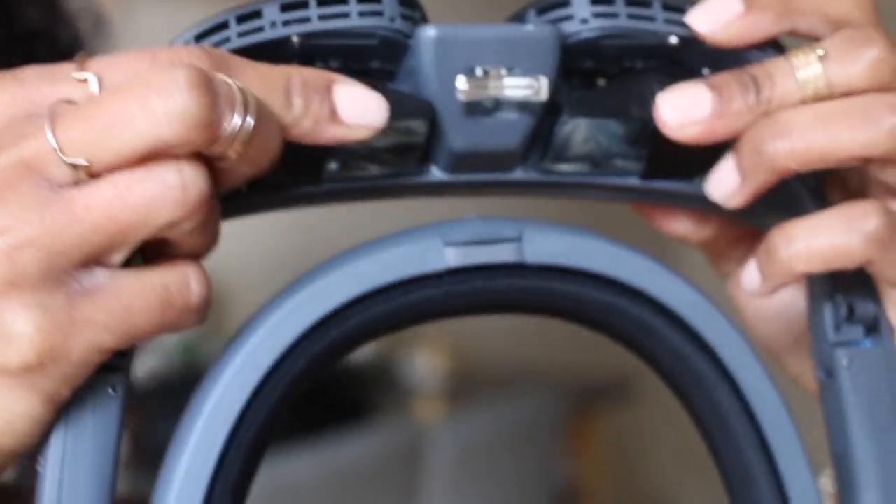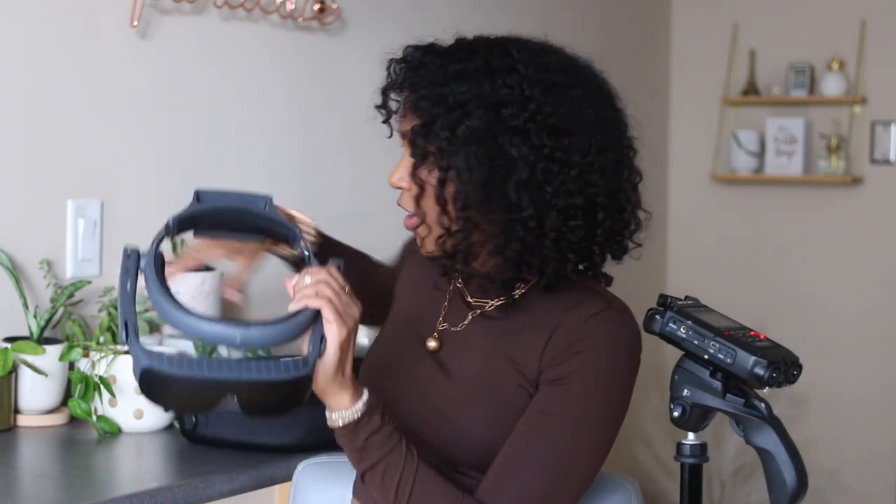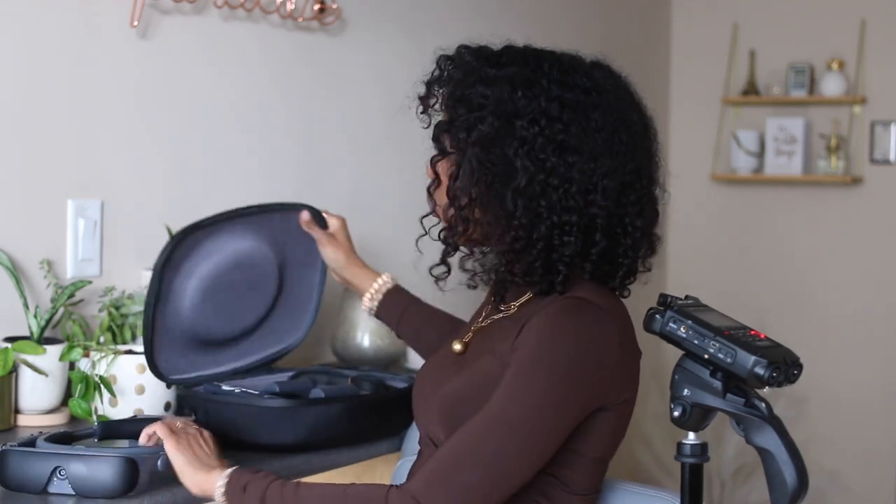There are also some adjustments here so you can change the prisms to better suit where your eyes are, which is so clutch. Because if you have an eye that goes to the left — trying to be irreplaceable — like mine, you're going to want to switch that a little bit in or out so you can actually use that eye.